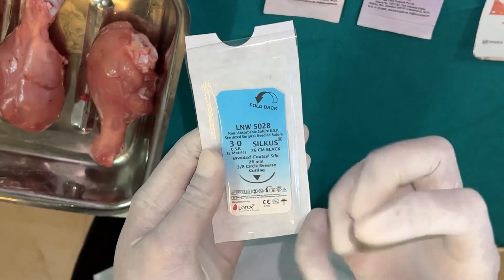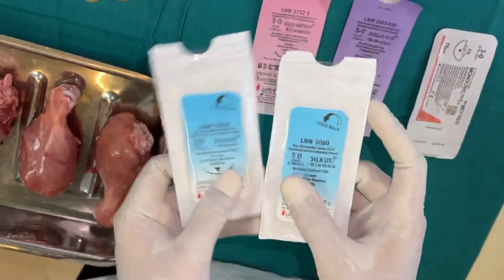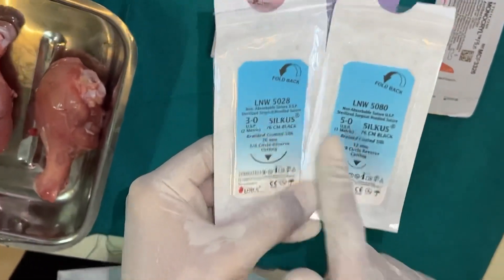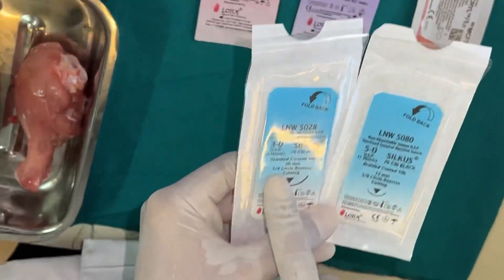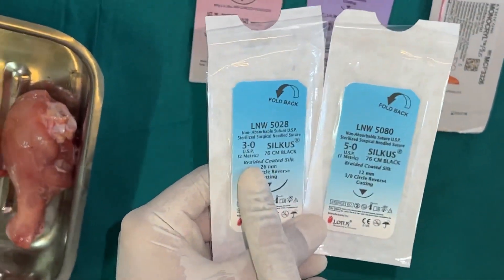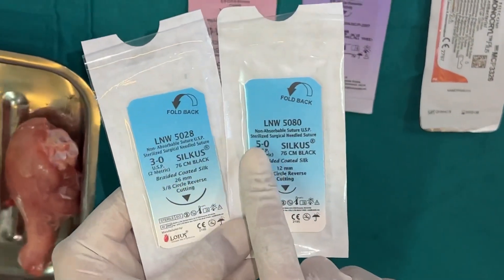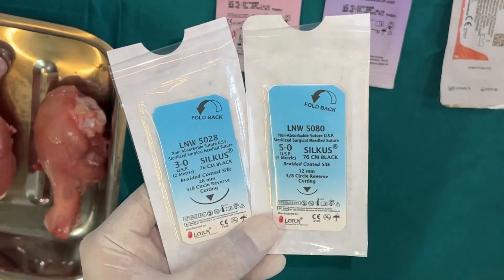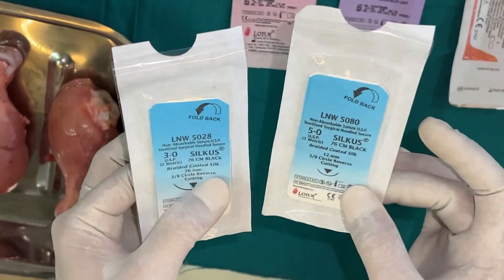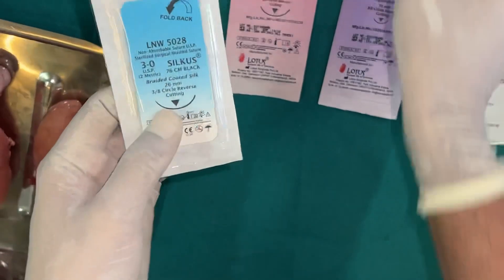In dentistry, we generally use two different thicknesses: 3-0 for full-thickness flaps and 5-0 for partial-thickness flaps. Once we have understood the thickness, the next important property is the cross-section of the needle.